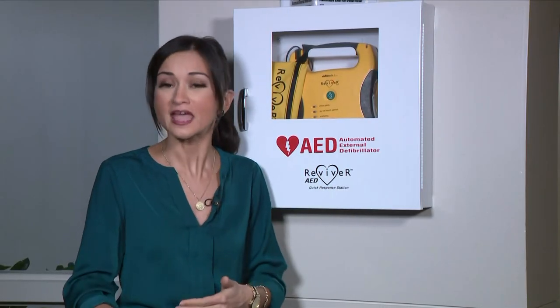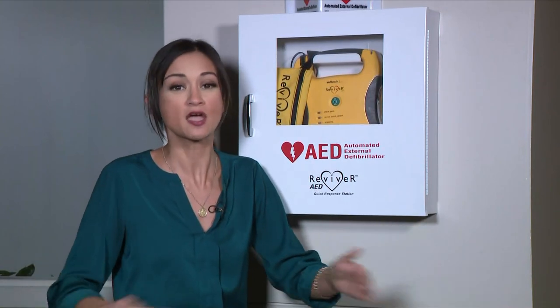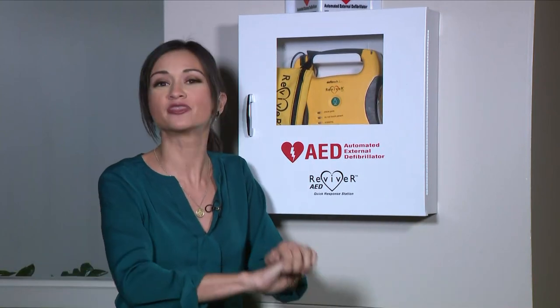As a reminder, you don't actually need to be CPR certified to perform it, but it is important, according to the CDC, to be educated on how that procedure works. That means knowing how to position somebody, where to position your hands on them, and the rhythm you should use to give them those chest compressions. There are a lot of different resources out there, including training classes and videos online. It's important to educate yourself, even on something as simple as where your AED is located in your office building. I hope we never have to use it, but at least we have a little bit of knowledge and background on it.